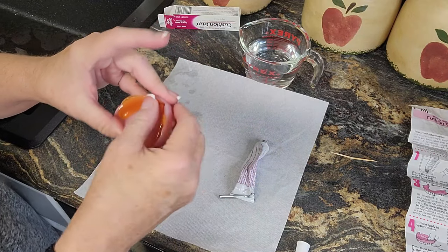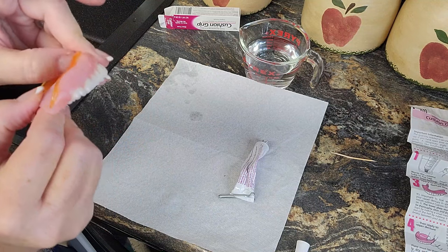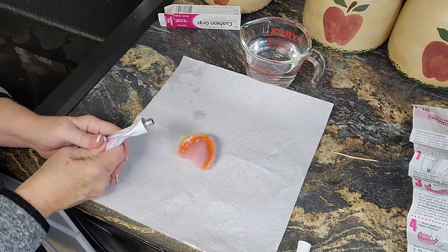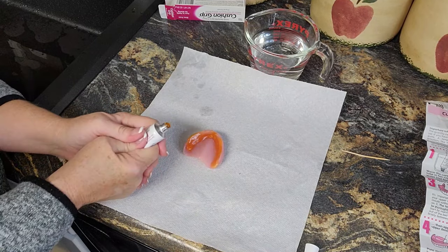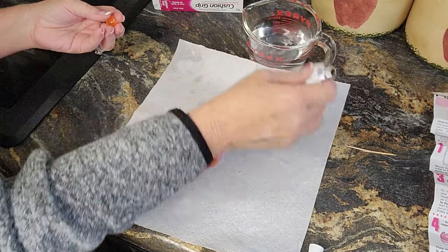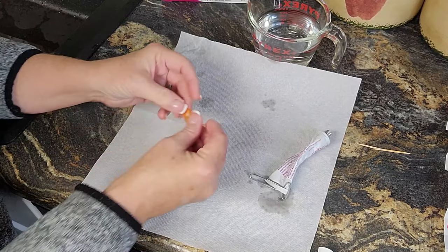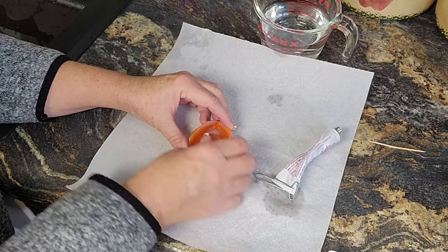Just put it in the center — and there goes the dog, of course there goes the dog. See this? See how high it is now? We're going to cover the denture with it. Get another ball out and then we're going to flatten this one and just kind of put it in there.